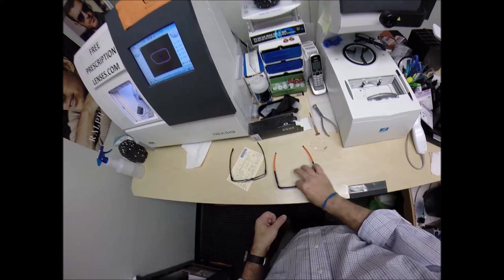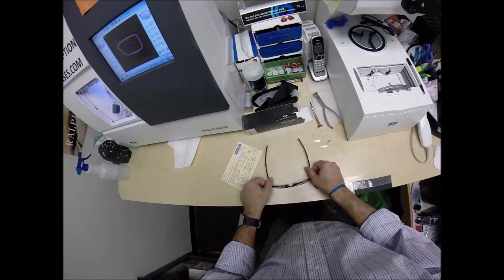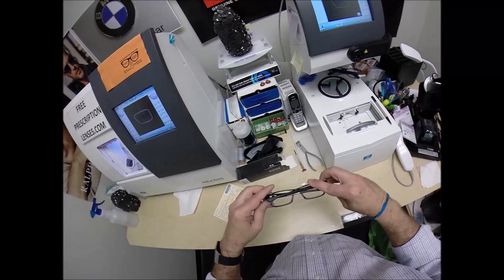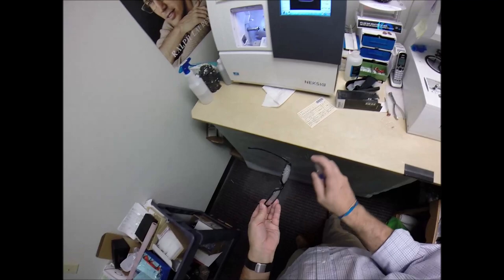Now when I say wobble, these are my Ray-Bans, when I take them off I press down they wobble on the counter, can you listen? But they sit level on me. Now I'm wearing my other frame, the Oakley 8132 cross range switch which also have what's known as the pilot temples. So if you can imagine a fighter pilot, that's what they were designed for. If they were in the cockpit they could take their glasses on and off, their Ray-Ban sunglasses without having to take their helmet off. Now people who ride motorcycles and other things this is still a nice thing. It has built-in wrap, it fits around the curvature of your head but still they can be adjusted up and down to correct for that. But yeah mine it's amazing how these just don't need to be adjusted, they are self-correct.